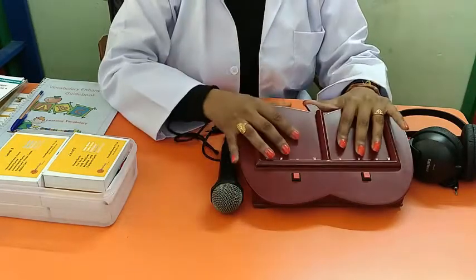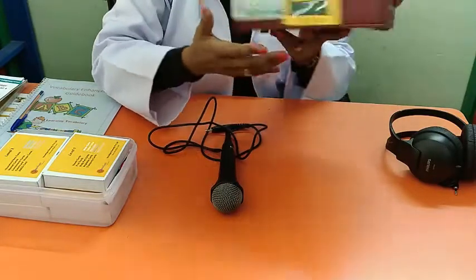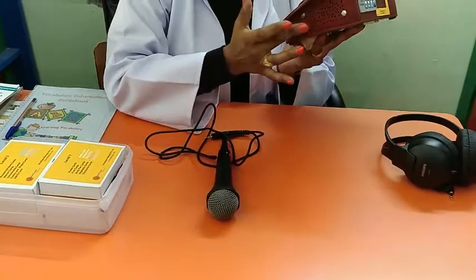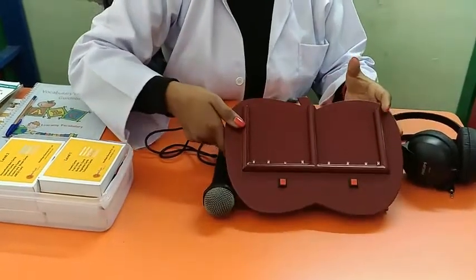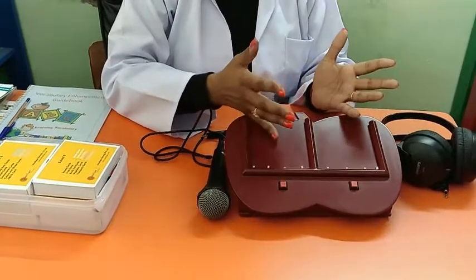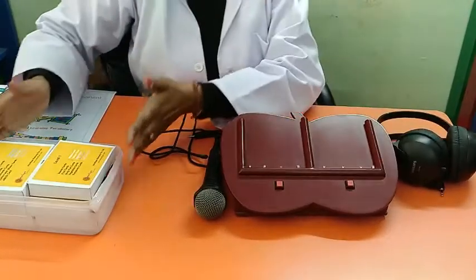Once you receive the device, you will have the Speechify device which has an inbuilt speaker output. For children who don't wear headphones or who are having sensory issues, the parents or the professional can directly do speech and language training through the inbuilt speaker output.